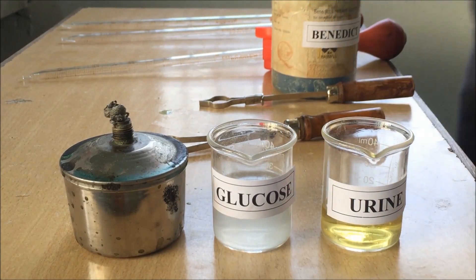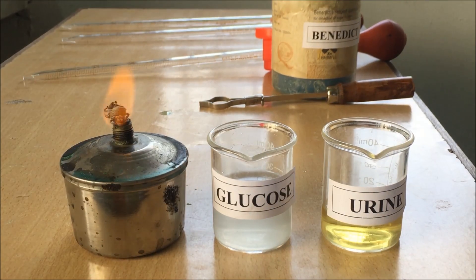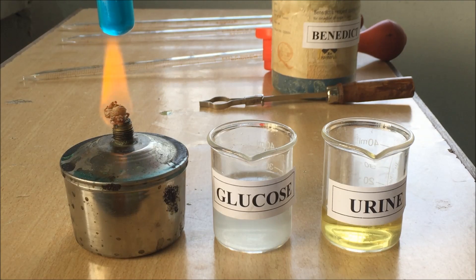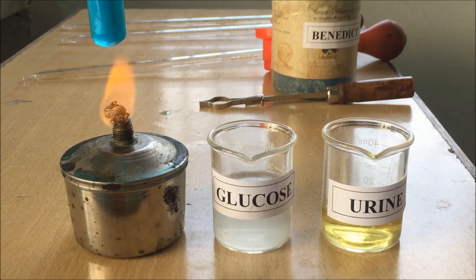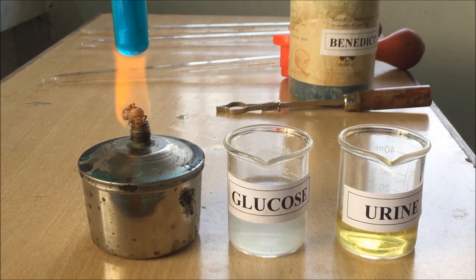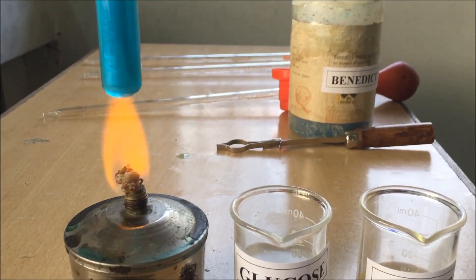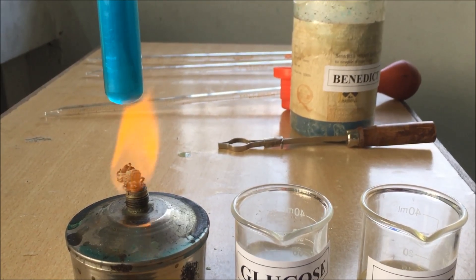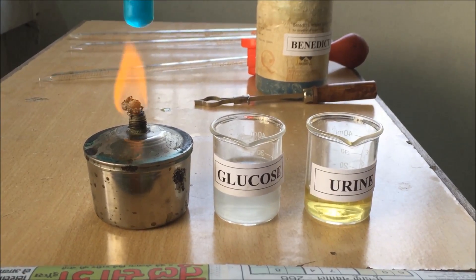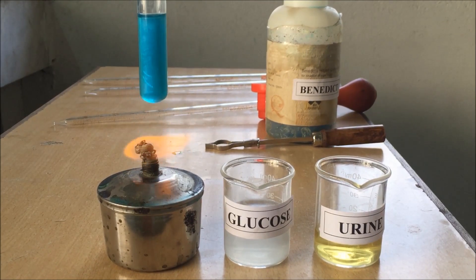We have to heat it for up to 3 minutes and cool it for 5 minutes. Now we will ignite the spirit lamp, place the test tube over the flame, and heat it gently. Never allow the test tube to stay in direct contact with the flame for more than 30 seconds — try to displace it and place it occasionally. Once the test tube starts heating, the color of the solution will start to change.